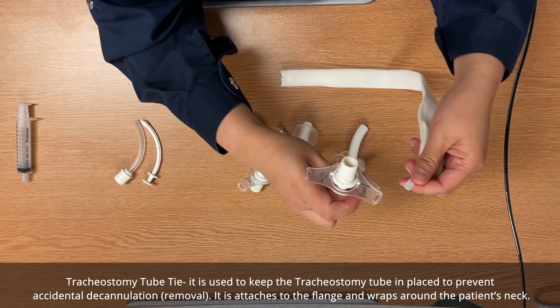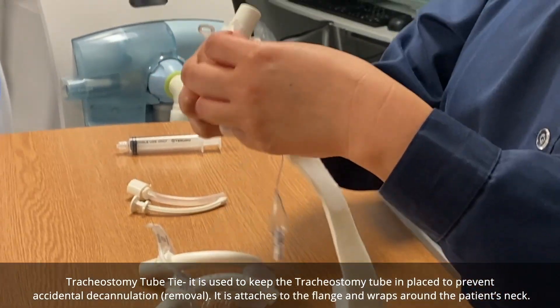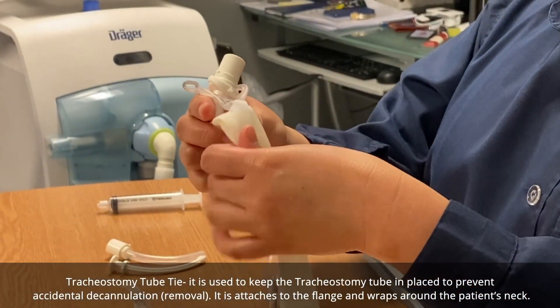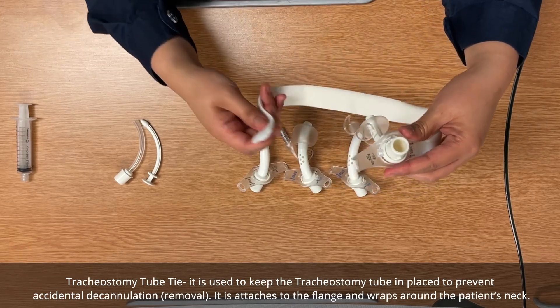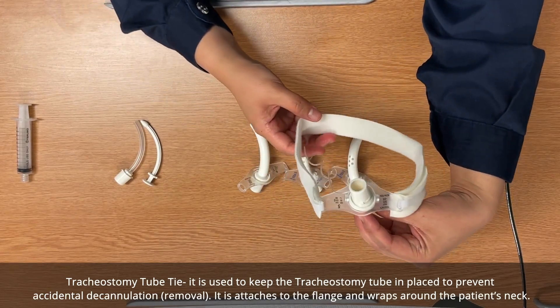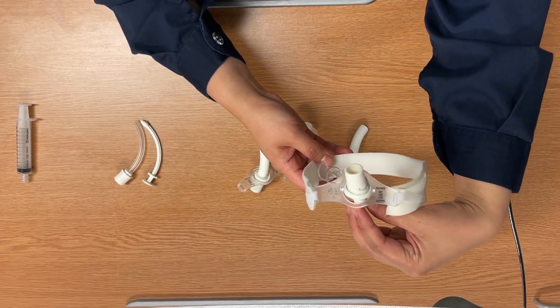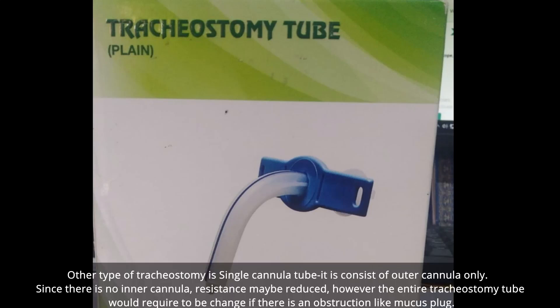The tracheostomy tube tie is used to keep the tracheostomy in place and prevent accidental decannulation or removal. It is attached to the flange and wraps around the neck.